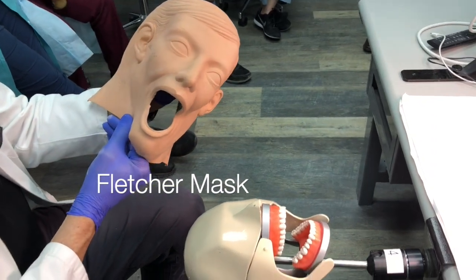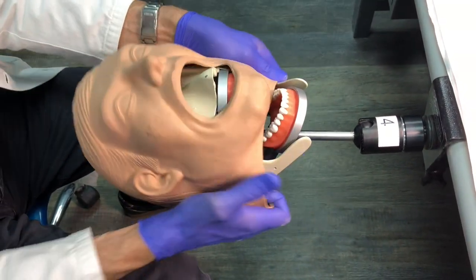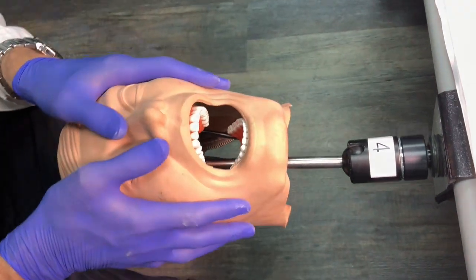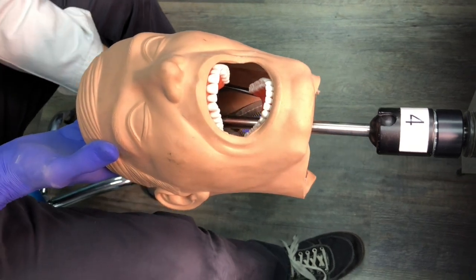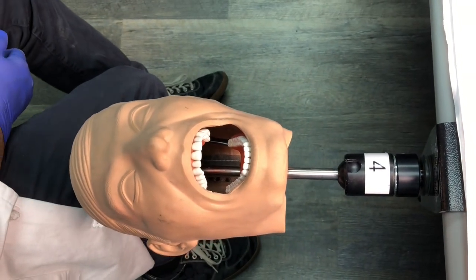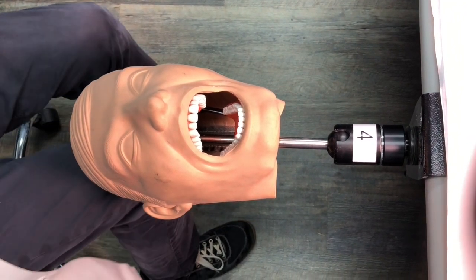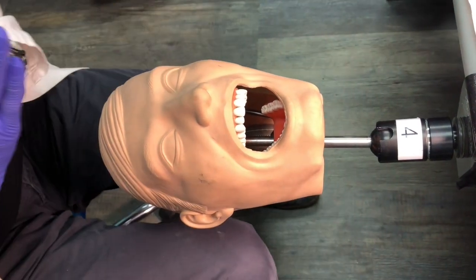This is good old Fletcher — he's going to be placed on top of the mannequin head assembly. By now the whole system is really heavy, so you have to clamp it tightly to make it stable. We orient the skin over the head and zip the skin on all the way down. This is as tough as it gets — the hardest mannequin in the whole country, with skin on and jaws. If we can navigate this, we can navigate anything.